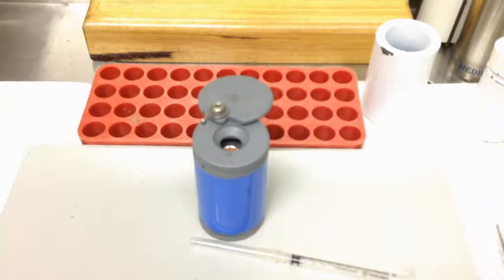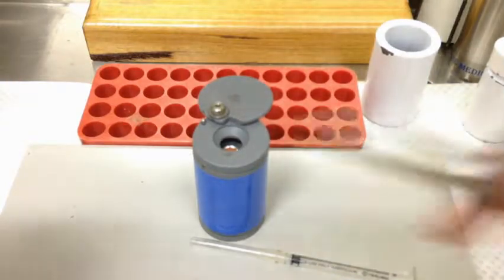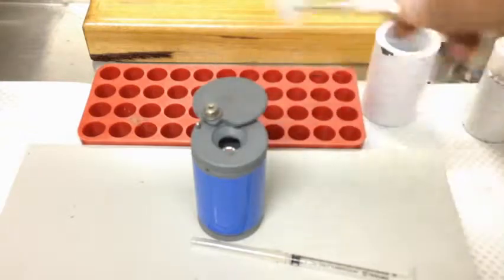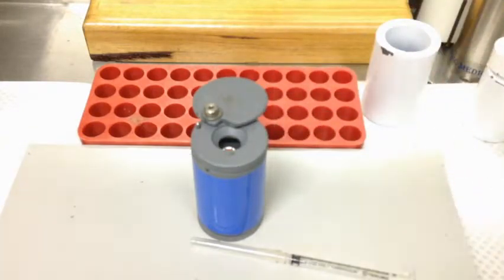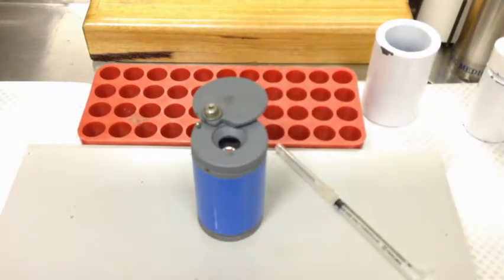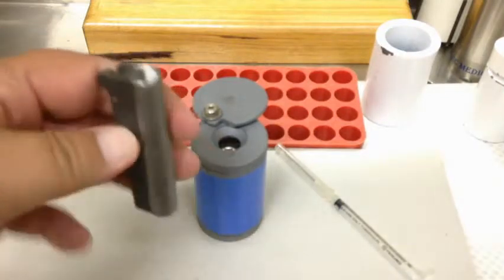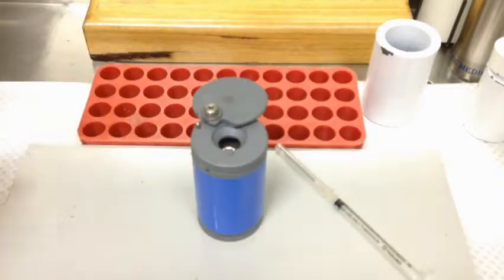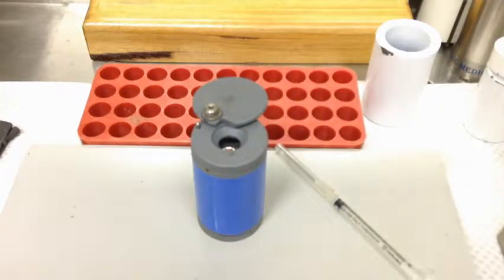This could be potentially radioactive, and there could have been 2 or 3 doses drawn out of this vial already, so it needs to be cleaned and disposed of appropriately. We want all our tools ready to go — we've got our syringe, and we're going to put it into a tungsten syringe shield for injection. That's sitting adjacent to me but not on the bench. Off to the other side, we've got the lead pot we'll use to transport the dose to the patient.